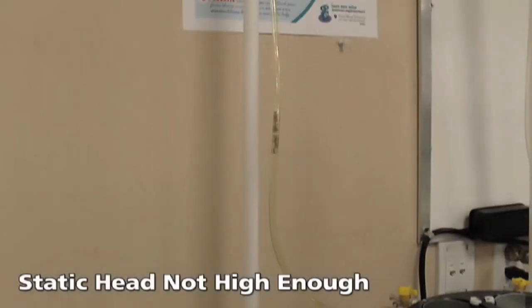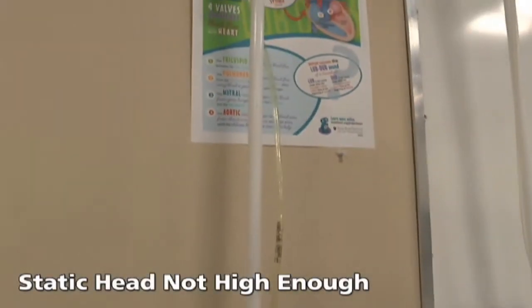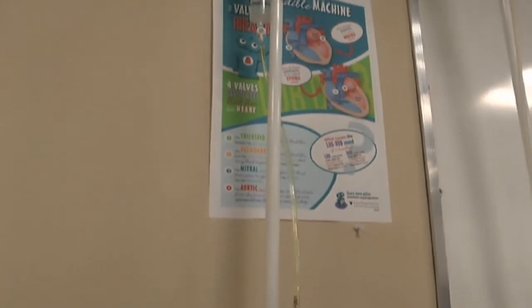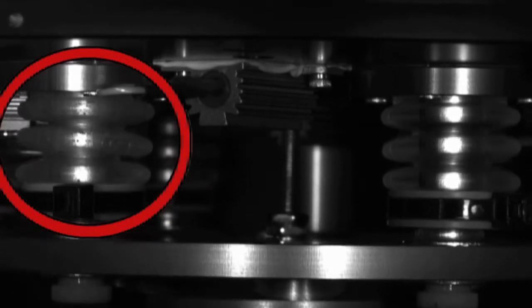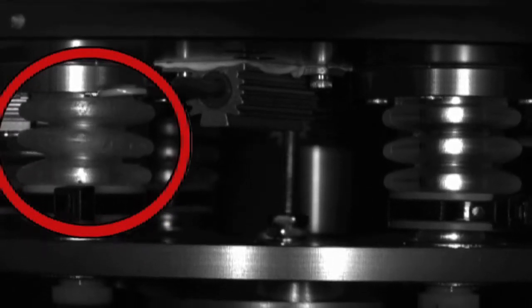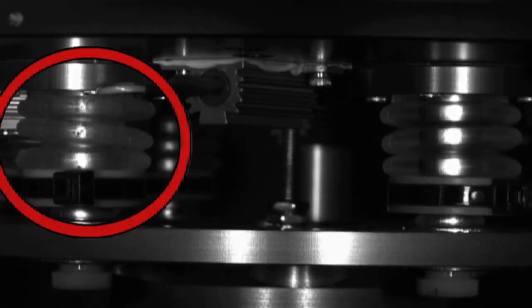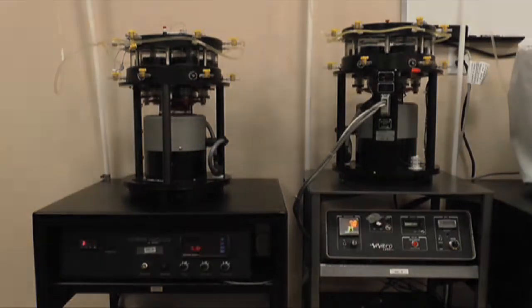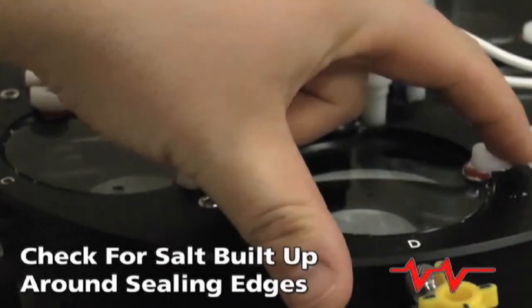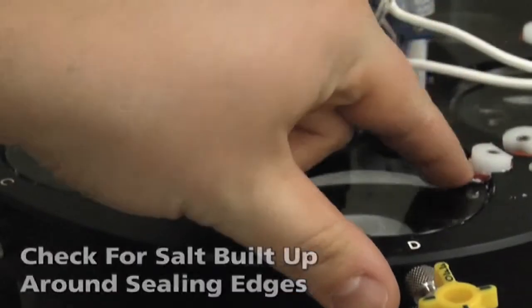The static head may not be high enough. When the bellows start to wear, air can penetrate small cracks in the silicone. Fortunately, air infiltration can be minimized by regular equipment maintenance and proper setup. Check for salt buildup around sealing edges, like chamber windows, drain ports, and the scan valve.